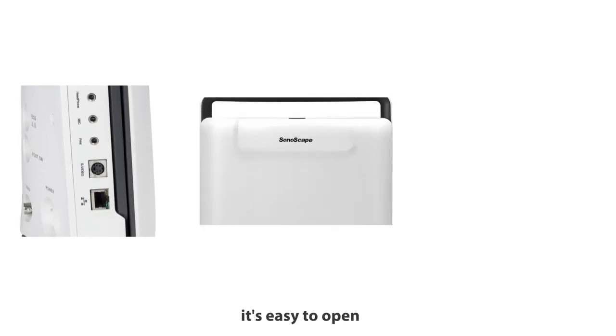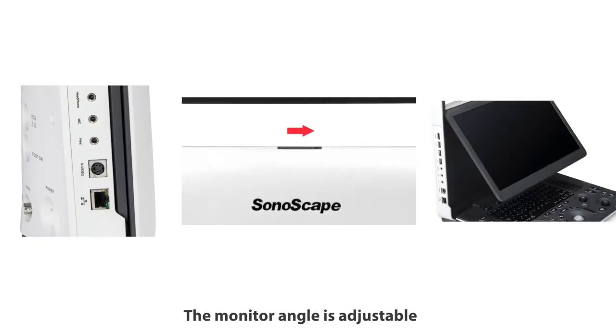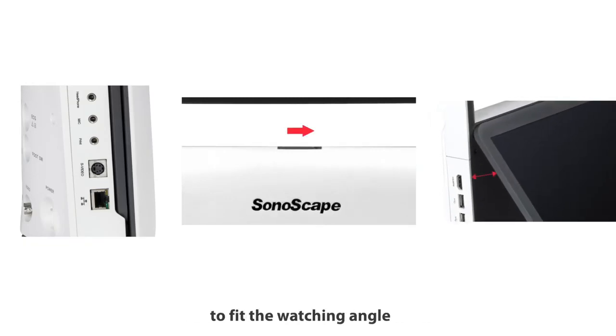It's easy to open by sliding the locking switch to the right. The monitor angle is adjustable to fit the watching angle.